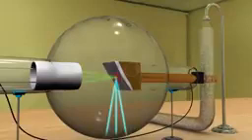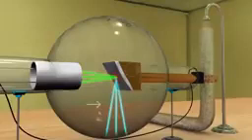So, if we can increase the rate of electrons emitted by the filament by increasing the current flowing through the filament, then we can increase the intensity of the x-rays.